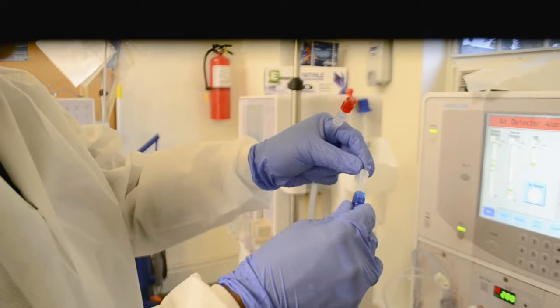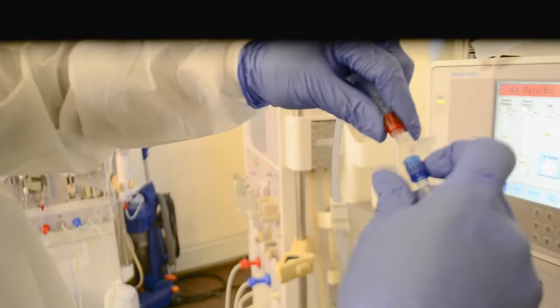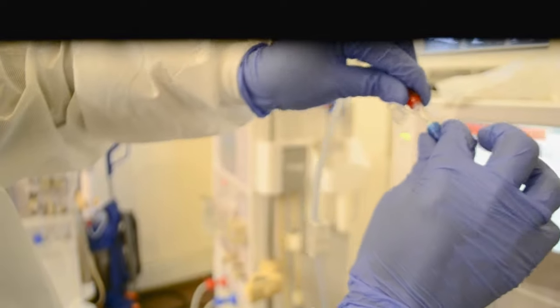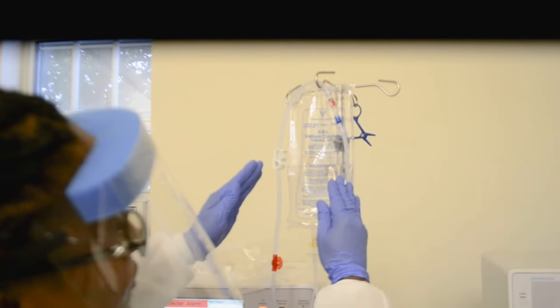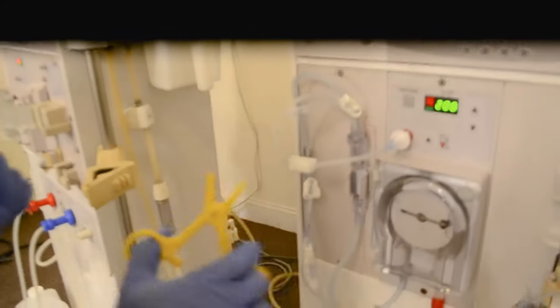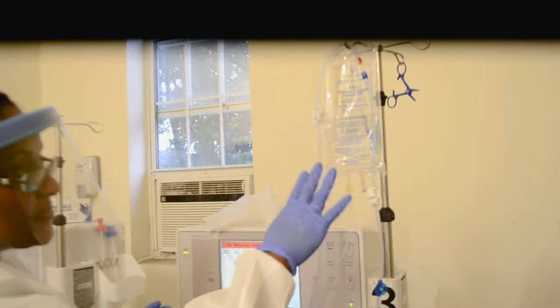If I remove the venous and there's accidental minor contamination, when I connect to the patient it's going directly to the patient, or if there is any air bubble. So I prefer to remove the cap from the arterial end first. I lift this up, hold on to this end, remove this part, and then I'm going to make this into one circuit. Notice that they screw tightly in the opposite direction — blue goes in this direction, red goes the other way. I just want to make sure they're secure, then I'm going to hang them here. Before I take my hands down, I have two clamps that I need to open up — one, two — and then the third clamp, three.